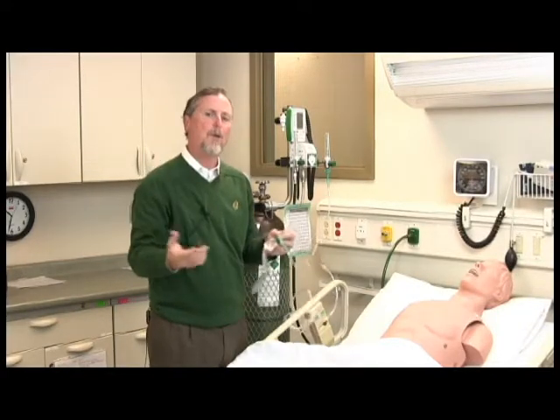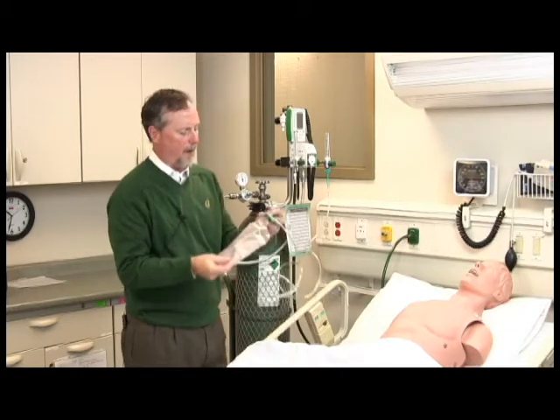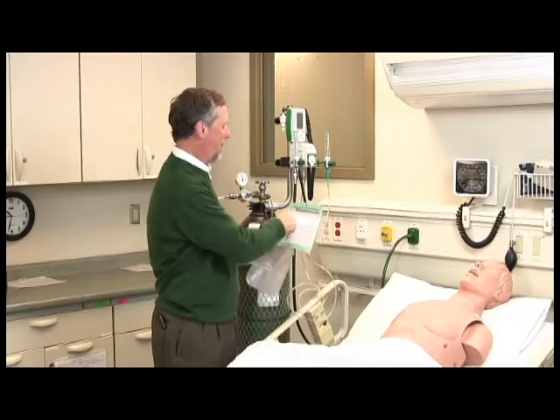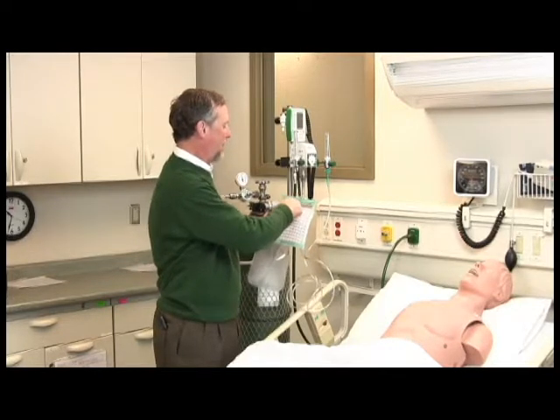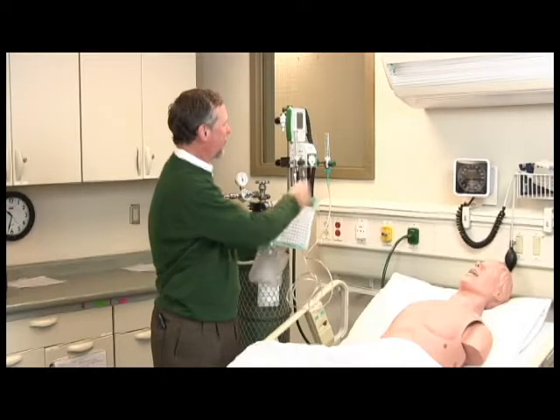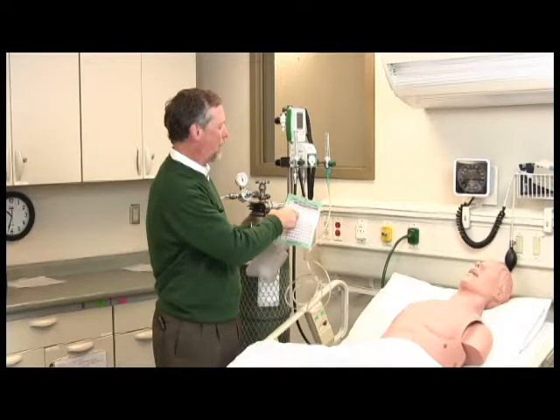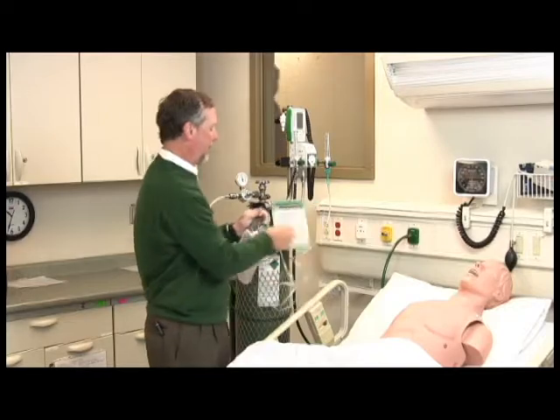One question is, where do we start flow, and what's the correct flow for Heliox? Typically a non-rebreather will be run at about 15 liters per minute. So if we look on our chart right here, we have 15 liters a minute total flow. We're on 40%, and that requires about 10 liters dialed in on the oxygen flow meter. So at 40%, we'll have a total flow of 15 liters per minute. We look over here, and that says an oxygen flow meter setting of 10 liters per minute.